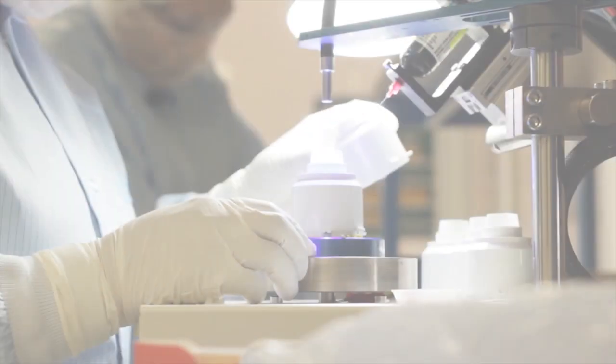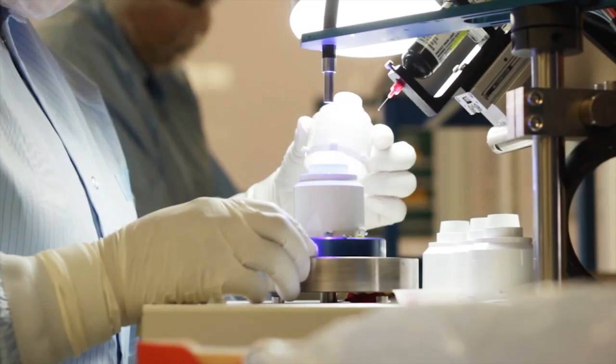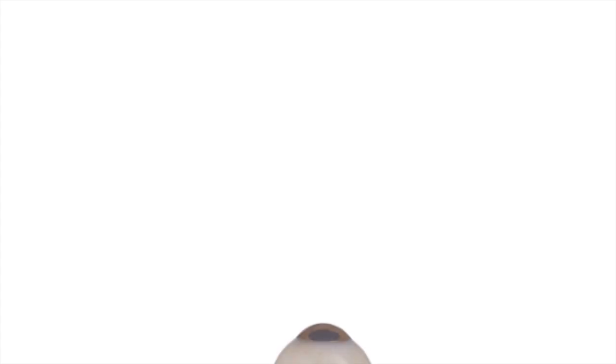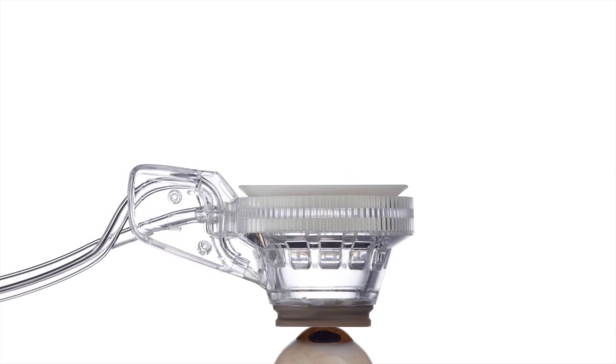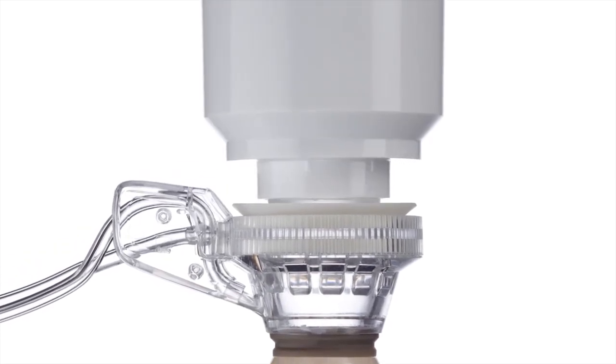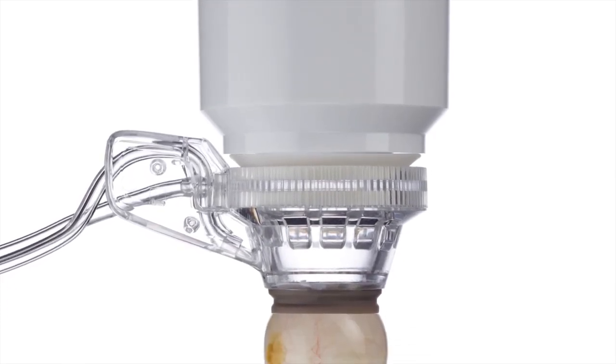The liquid optics interface doesn't only improve the optics on the eye. It improves the optics through the entire system. So that when OCT is used, the quality of the OCT signal is greatly enhanced because of these liquid optics.